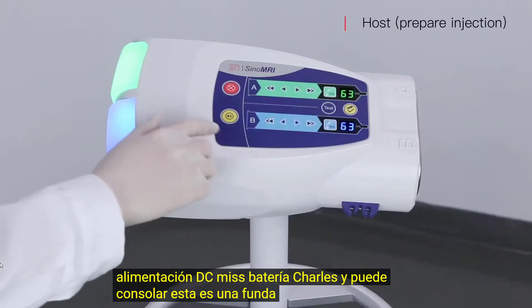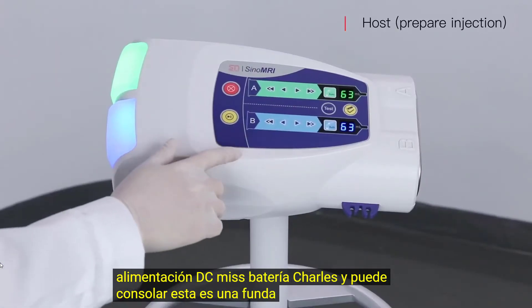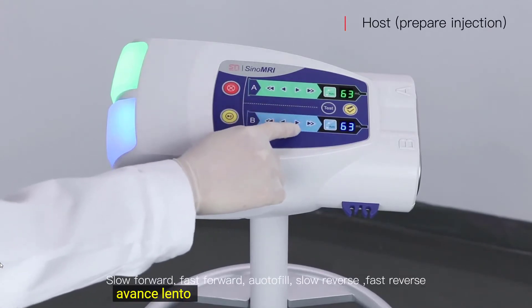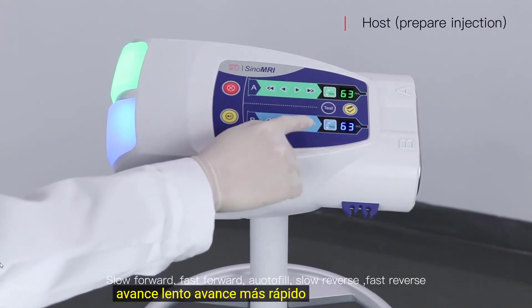This is the host. Push in the power cable and turn on the main tool.